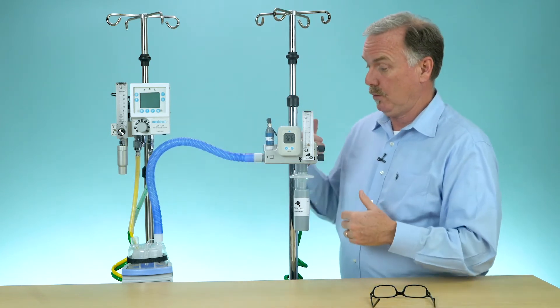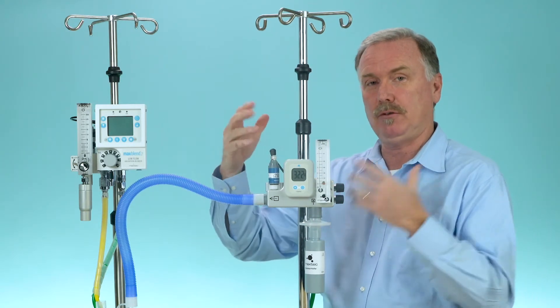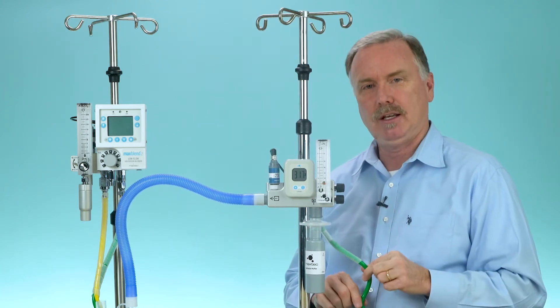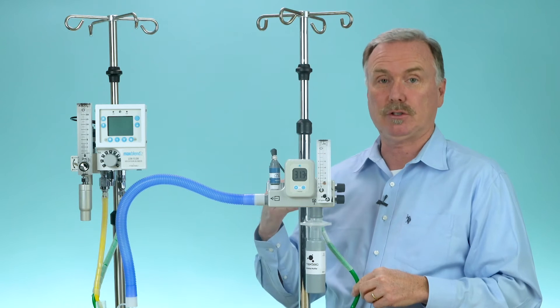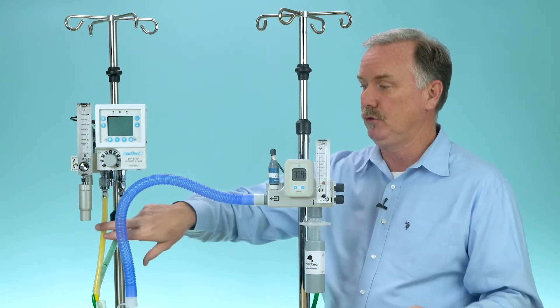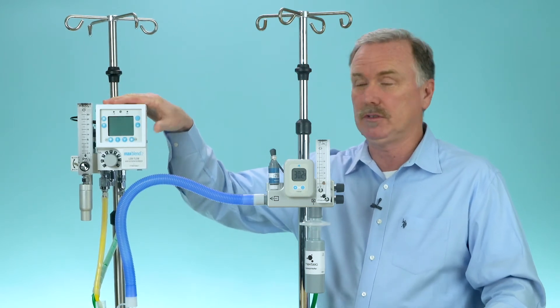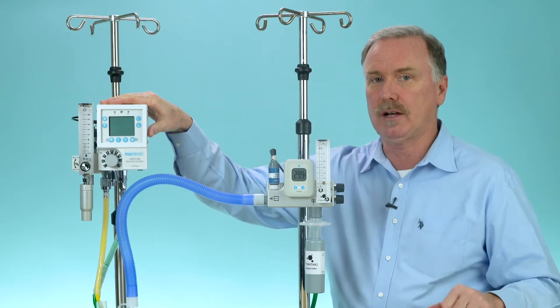So why would you choose the Max Blend 2 over the Max Venturi? I just gave you a whole list of reasons why the Venturi has its own personality. Once again: if you only have one gas source in your room, the Venturi is your only choice for delivering high flow. If you have dual gas sources, you can go to the Max Blend 2. The Max Blend 2 really doesn't care what's downstream — resistance doesn't affect it at all, whether low flow or high flow.